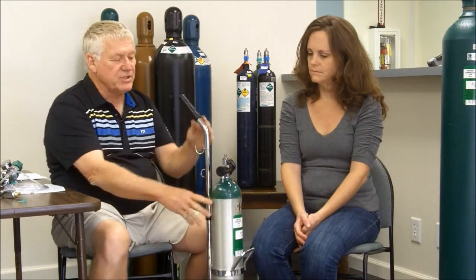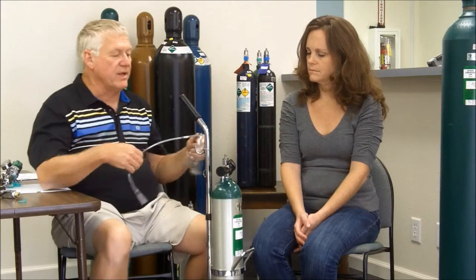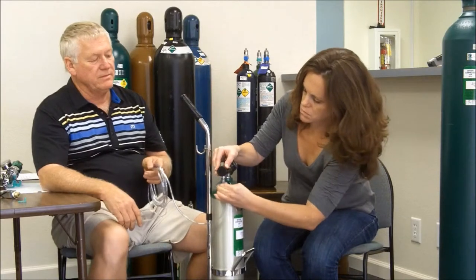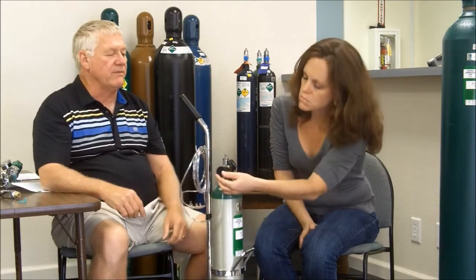If you've used part of the cylinder, it'll only go as high as there is pressure in the cylinder. The next step is to attach a nasal cannula, a mask, or a resuscitation bag. We have a nasal cannula here — you can attach it to the nipple of the regulator. Then select the flow that you would want to give your patient.